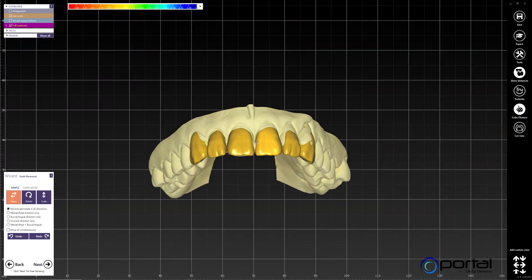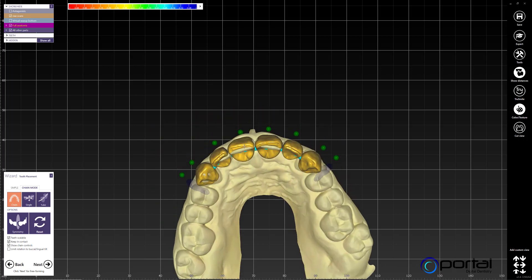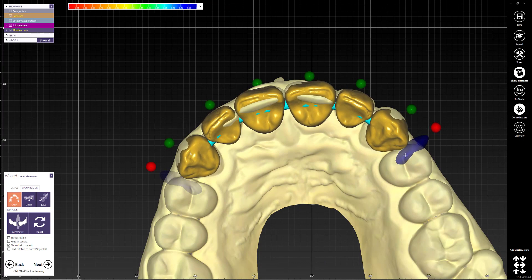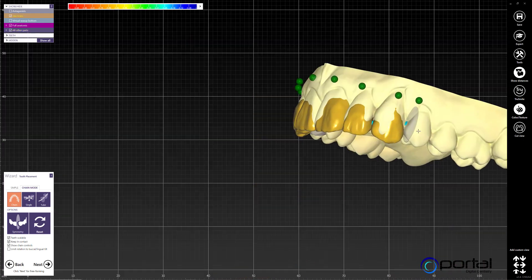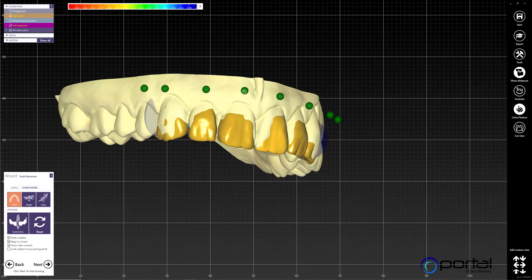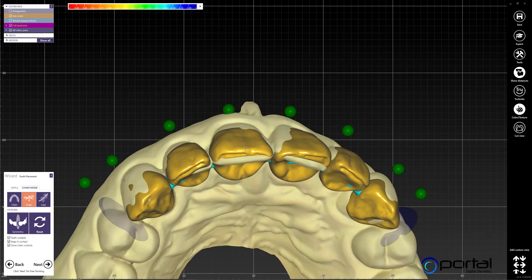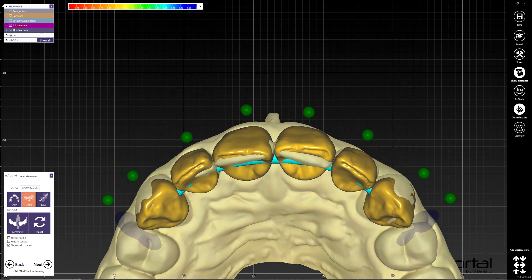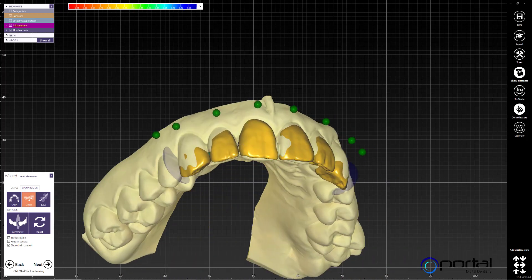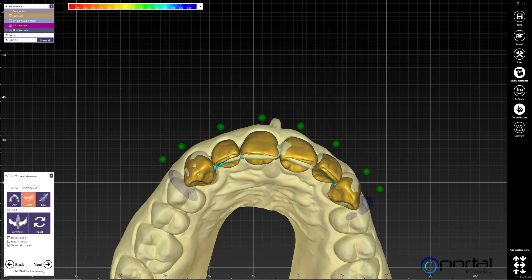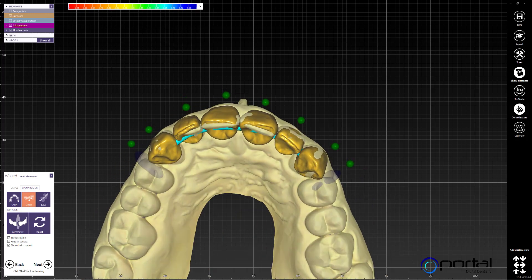From here I do the fine tuning of tooth positioning using chain mode — it is, up to this point, my favorite tool in ExoCAD. I first set my distal contacts and make sure everything is in the correct position. Then I go into single mode and start rearranging each tooth individually. Let's pretend this is more or less what we want and assume it's perfect.